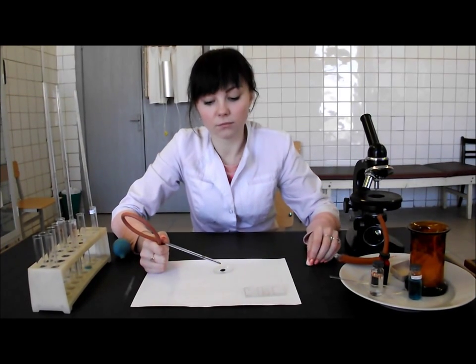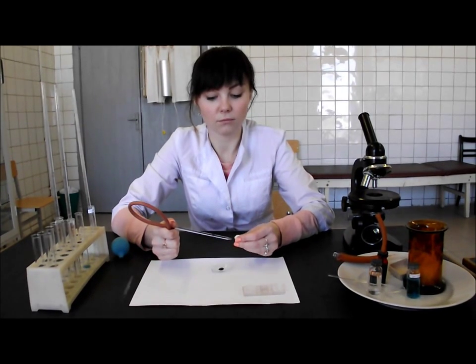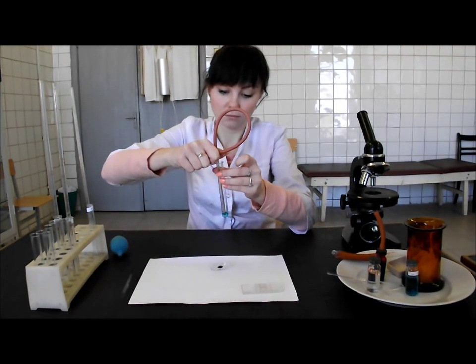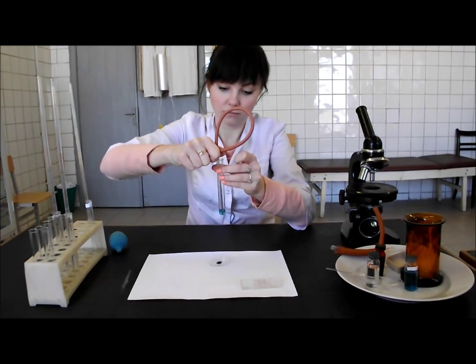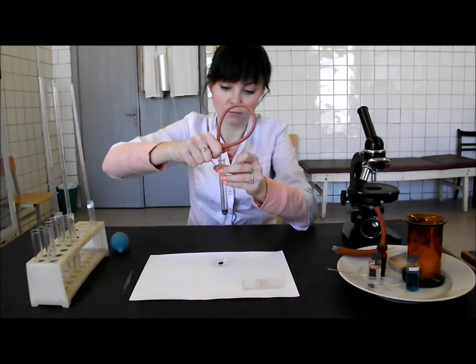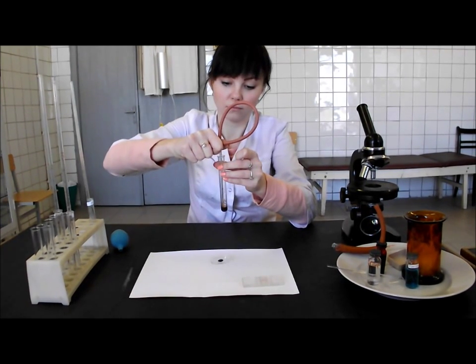Add 0.02 mL of blood to the bottom of the test tube with acetic acid, so that the upper layer of solution remains unpainted. Raise the capillary slowly and clean it with the acetic acid solution. Then dry it and put the capillary on the plate.